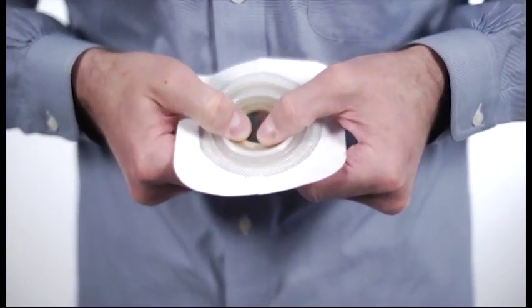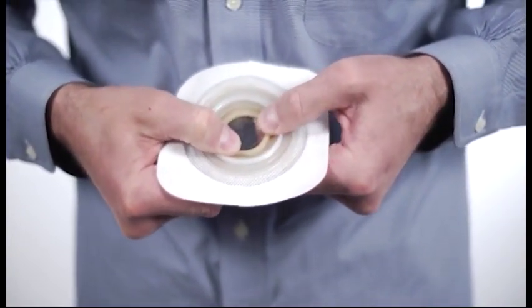Once you have molded the best fit opening, gently press the rolled adhesive on itself to hold the shape.